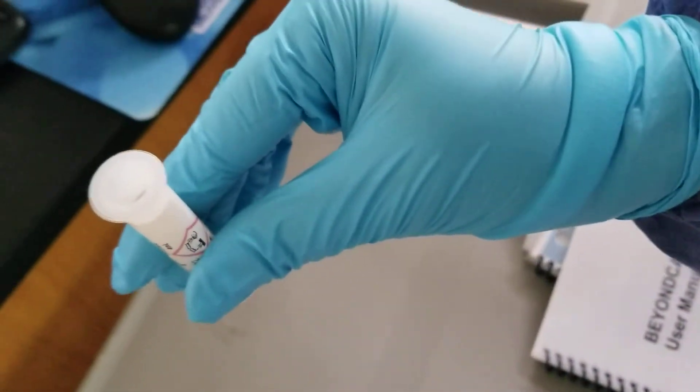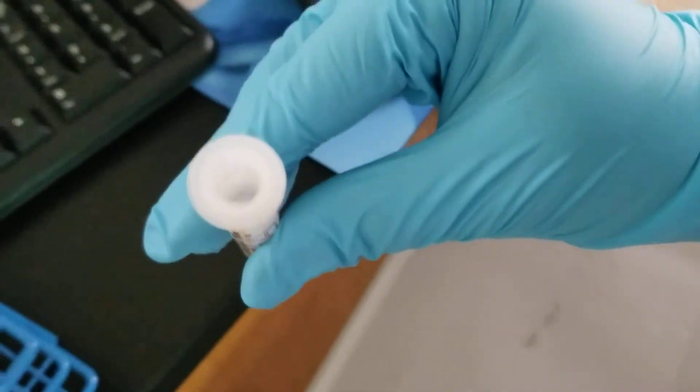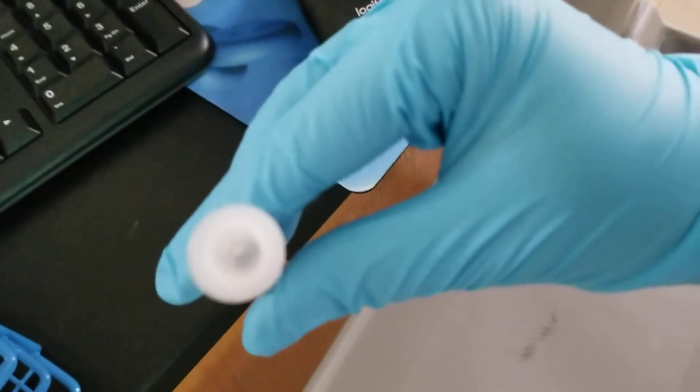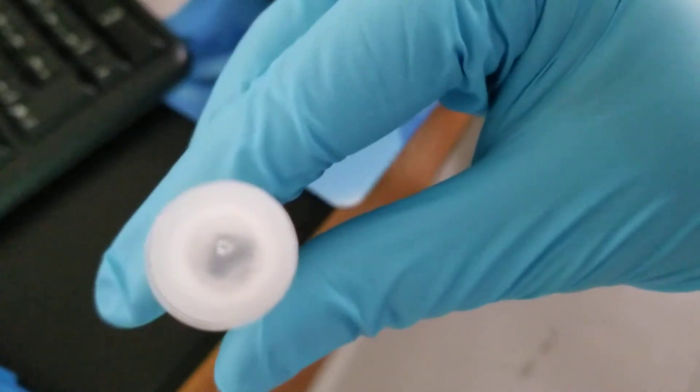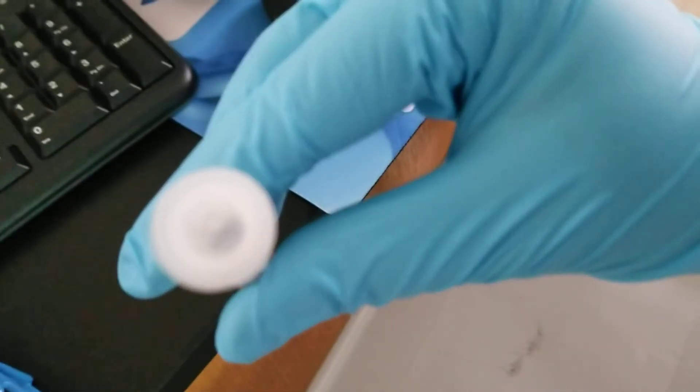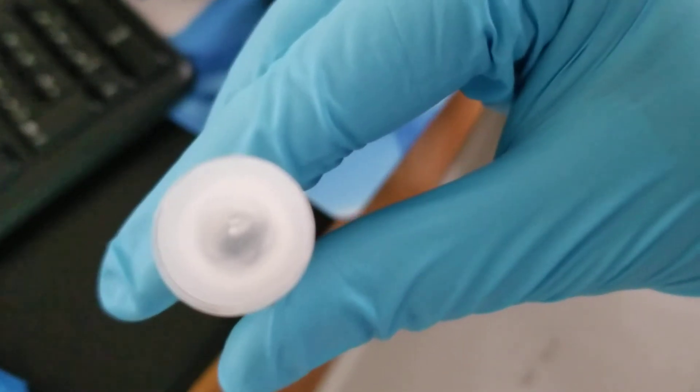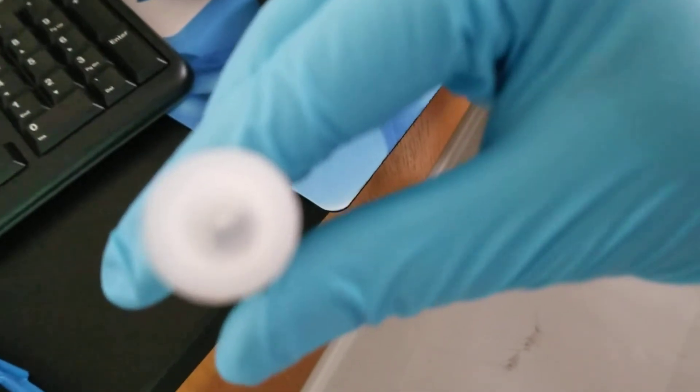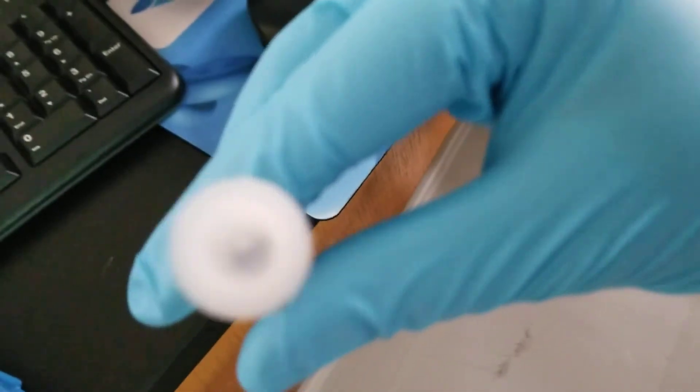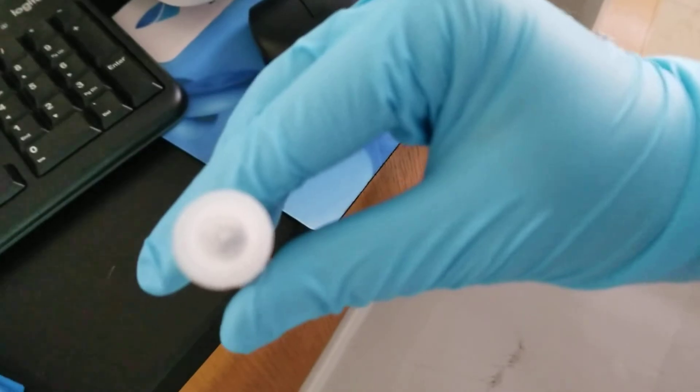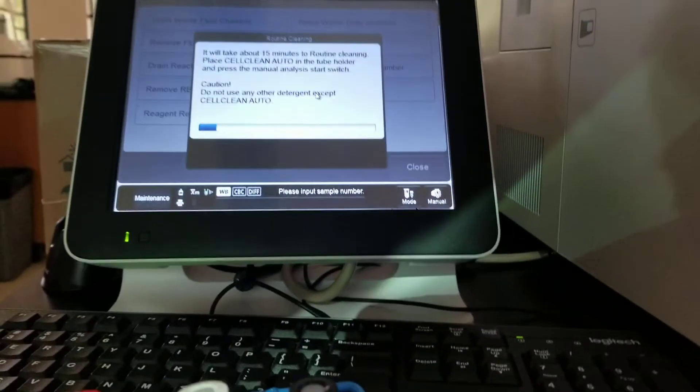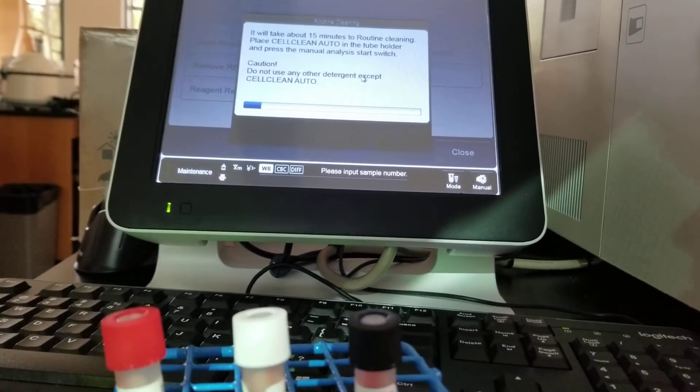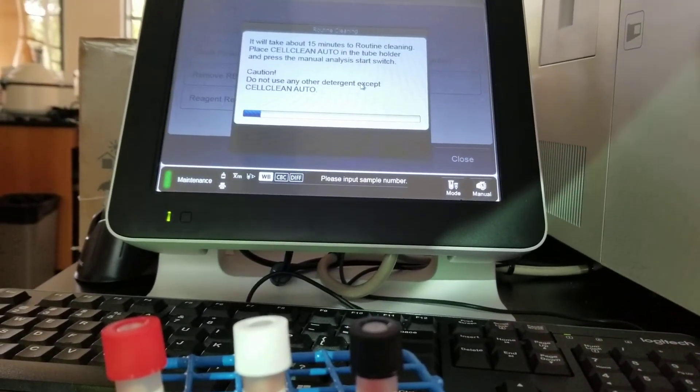During that time, the analyzer had pulled up the bleach solution from the cap. I don't know if you can see the hole right there. It's a puncture. It's a cap puncturing analyzer. Well, there was a minute where you saw it.